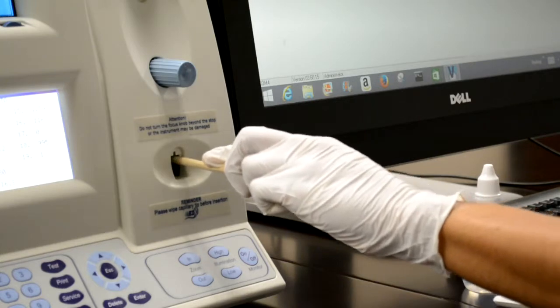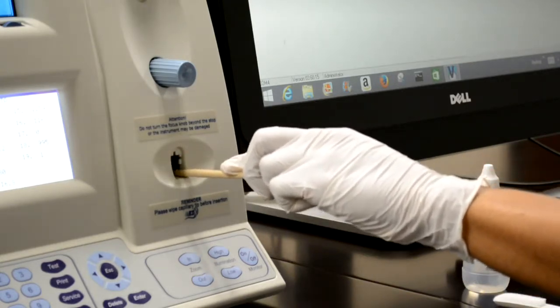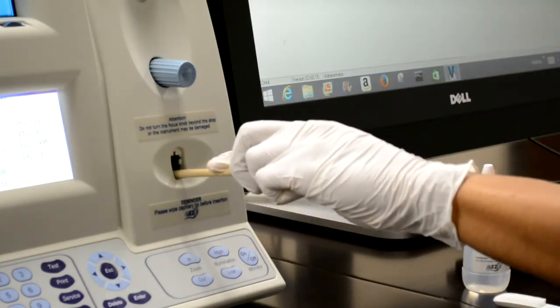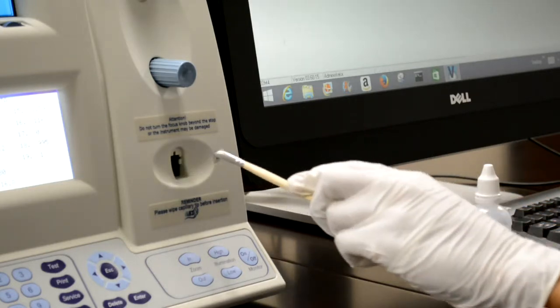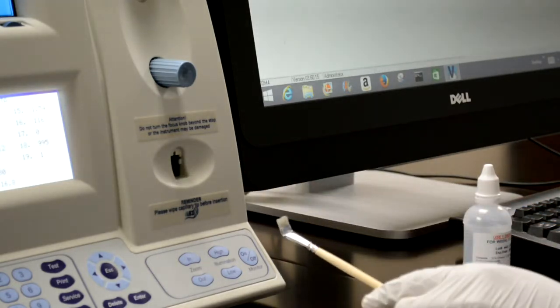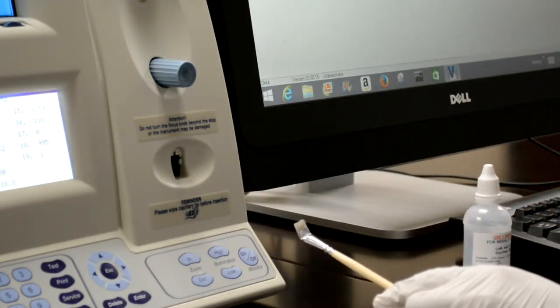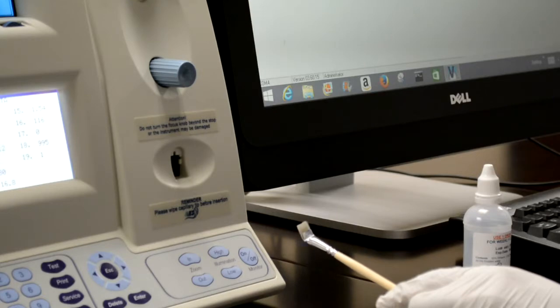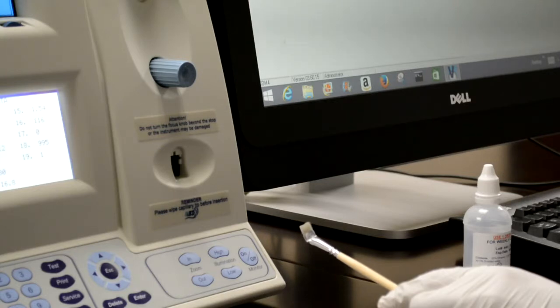You'll be able to monitor the reference 2 value in real time through vSperm. Again, this is recommended on any day that you test semen samples at the end of the day. We also recommend powering the instrument off at the end of the day. This will keep it from drawing in any unwanted dust during the evening, as well as allow for a fresh calibration the next morning when you turn it on.